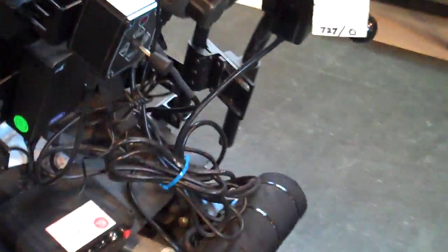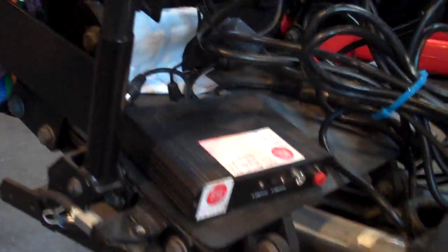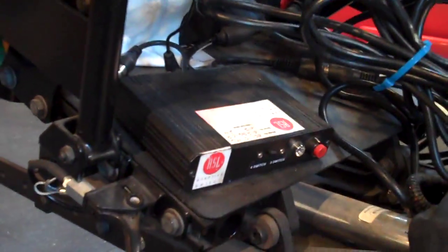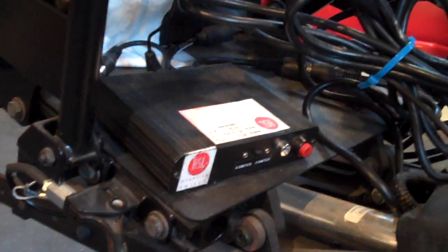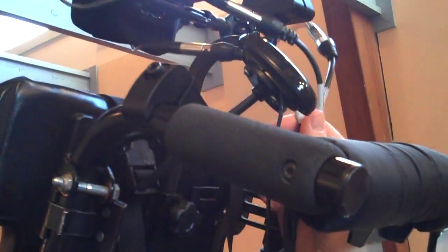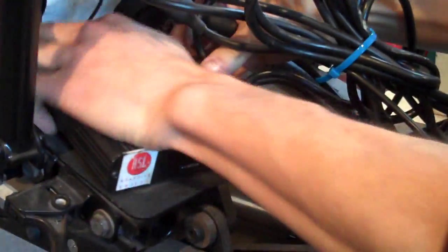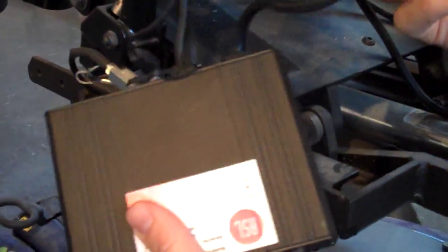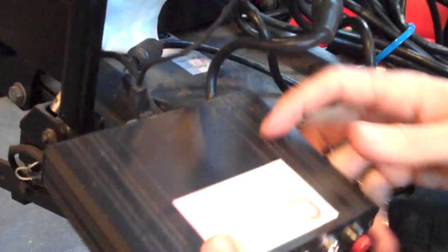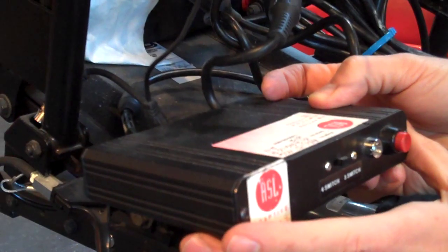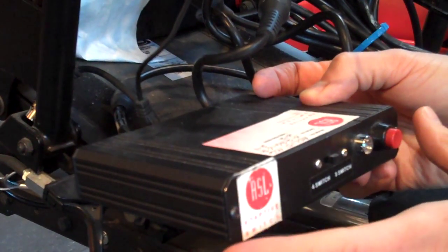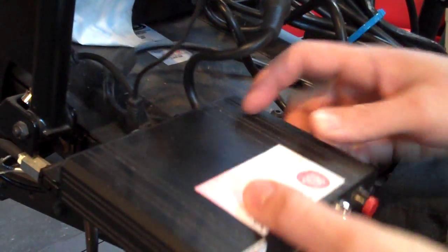Let's get back to this mess behind the chair. I'm going to point to this box right here. That's the ASL interface box. The headrest doesn't work on its own. These are the wires coming from those proximity switches. They come down here and connect into this box. Here's the cable that comes from that headrest—it plugs into here.